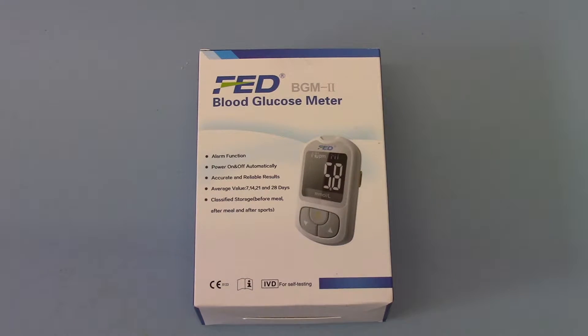Welcome to this presentation video where we're going to demonstrate the FED Blood Glucose Meter 2, the FED BGM Model 2, BGM2. In part one we're going to run you through what you get when you buy one of these meters online. In part two we'll demonstrate the setup procedure for setting time and date on the meter prior to use. And in part three we'll run through the operation of the meter and common problems encountered by first time users, to help guide you through the safe and easy operation of this meter and its memory.